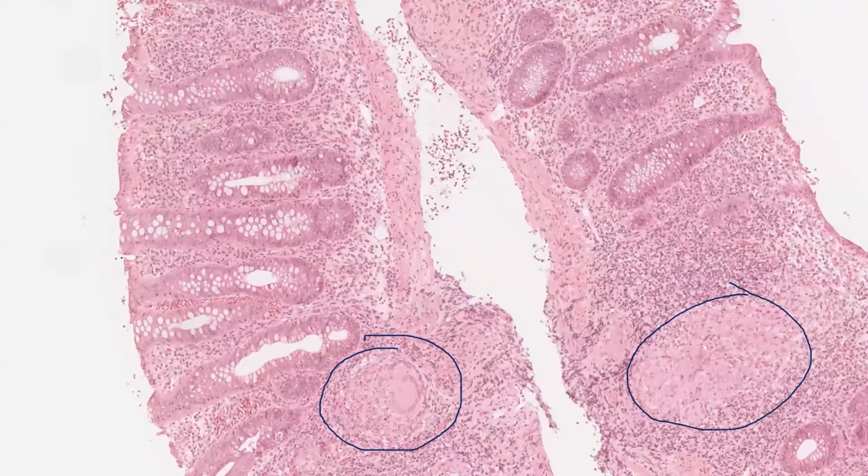Okay. So I just wanted to verify the point here, do you see this encircling? Do you see me when I mark the granuloma? Did you see that mark that I put around the granuloma? Just before we move on, because I do tend to draw. Yes, you do. Okay. So if you don't see it, I don't know why, but a lot of you do see this. So that's fine.